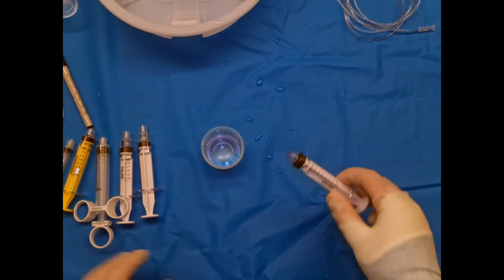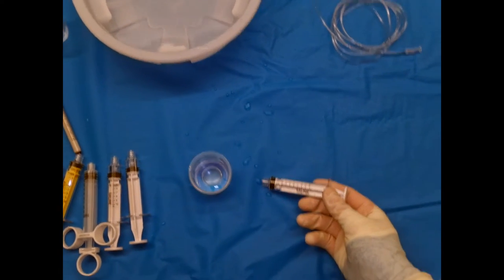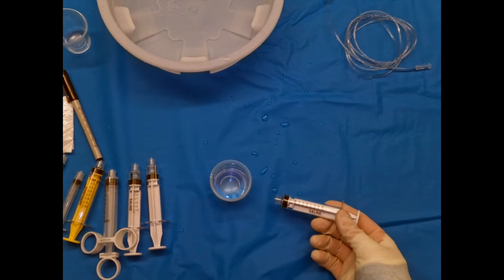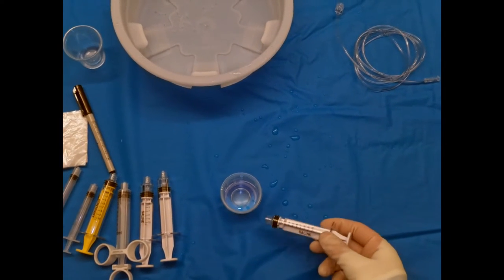We're going to go over how to fill syringes for neuro-IR cases. This may seem like a very simple concept, however it is a little bit nuanced and we're going to discuss that here in this video.